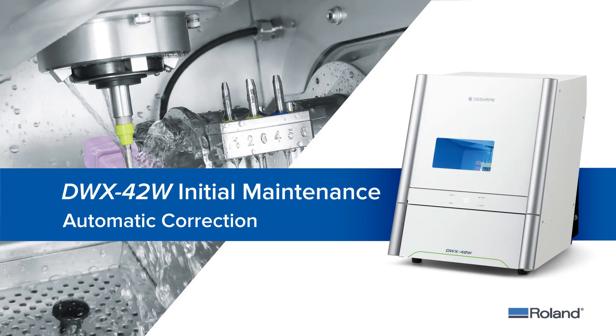This video will walk you through the necessary steps to complete an automatic correction for your DWX-42W wet dental mill.